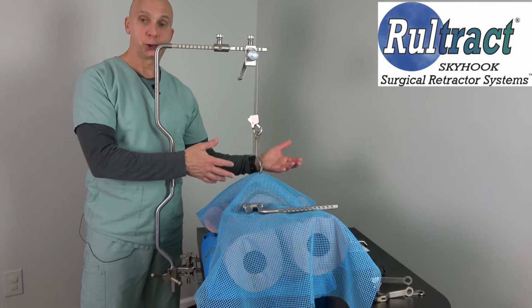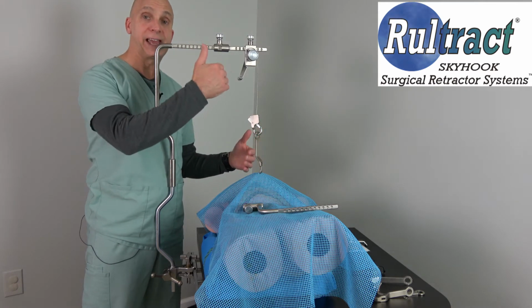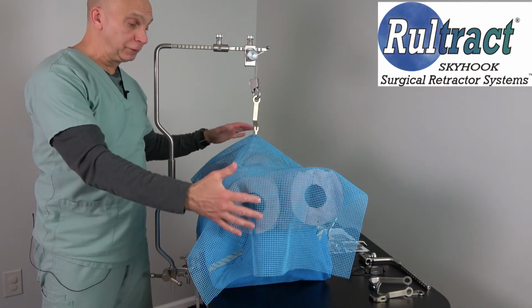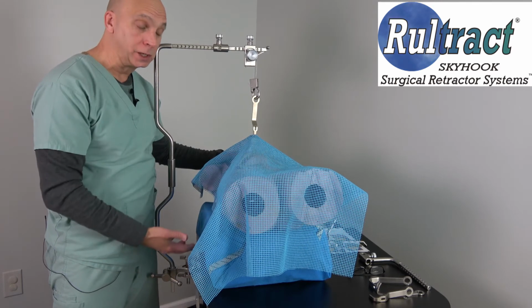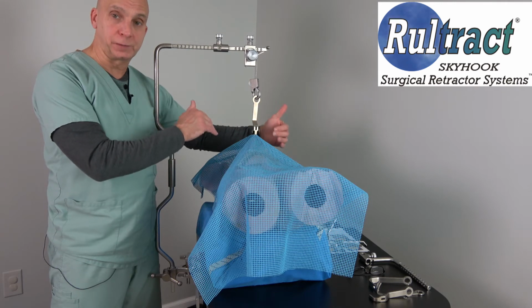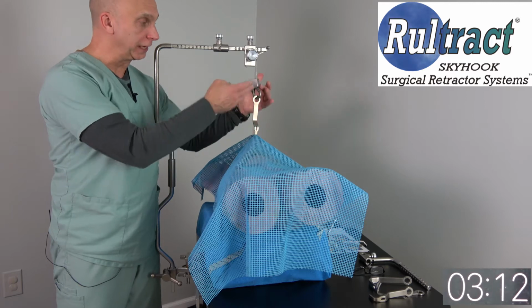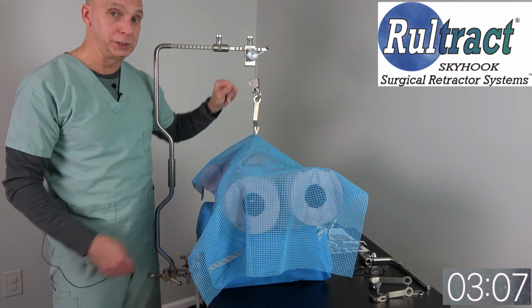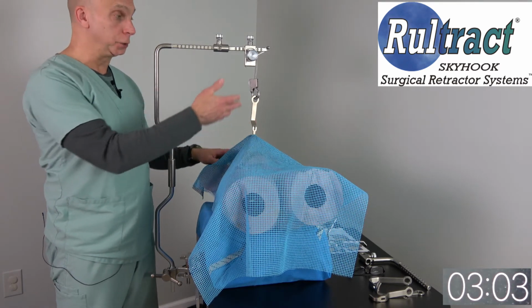Now I'll switch over to a more obese patient and you'll see how important it is to have additional height. Now, I do not have an obese model, so what I did was I raised our standard size model up off of the table to simulate where the chest of a very obese patient would be. And you can see here through the pericardial windows incision and retraction, you have very little cable to work with. So if you needed to retract further, you wouldn't be able to. And if the patient was larger, you would be out of cable.